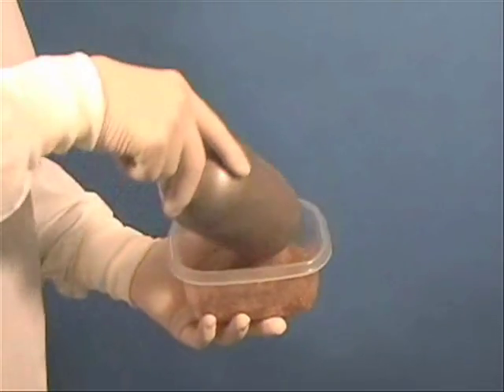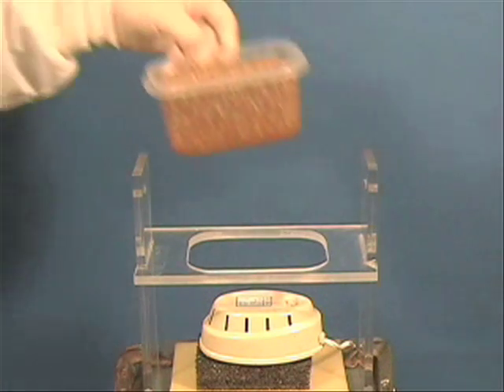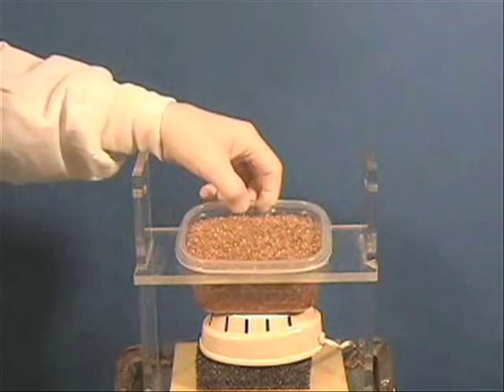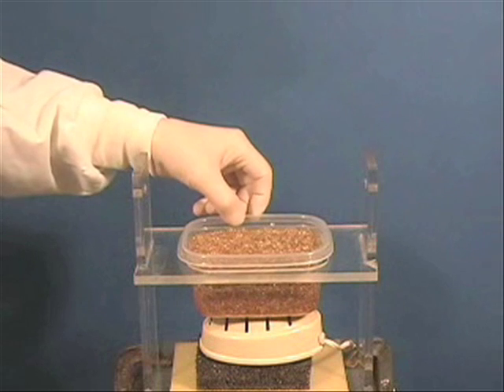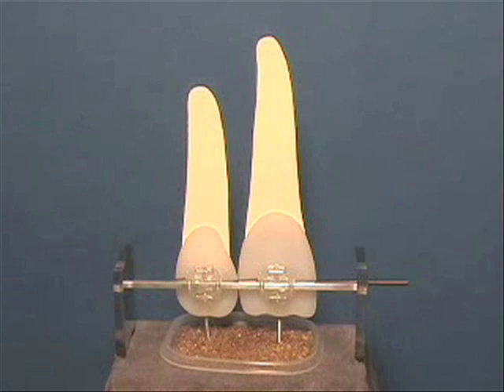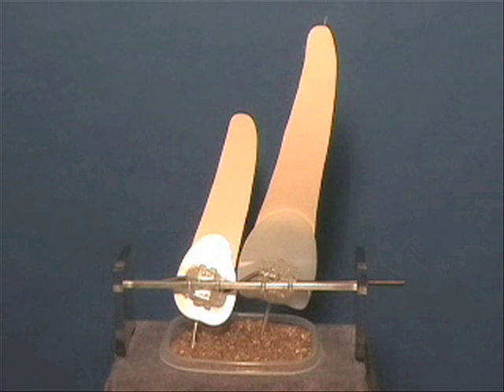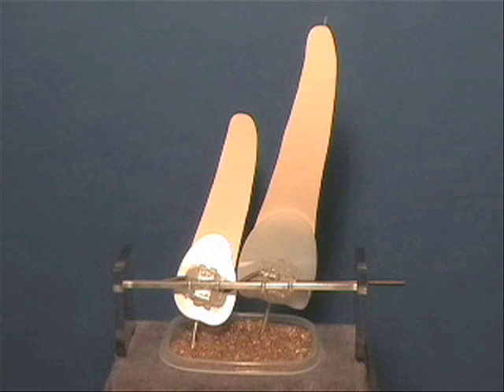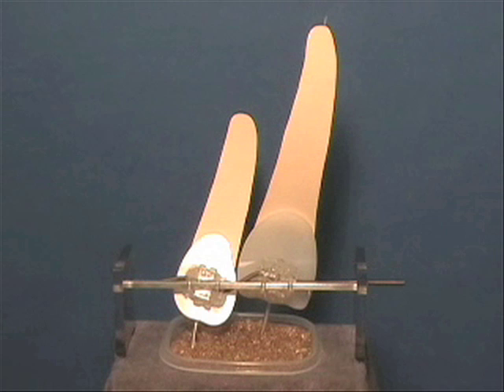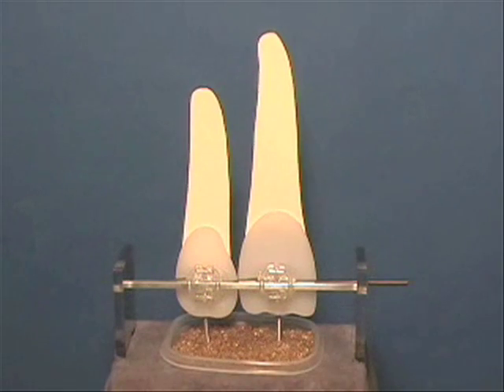An ordinary plastic dish is filled with plastic pellets. This will then be placed on top of a common vibrator as used when pouring impressions. Both of these are fitted into a special fixture which holds both the rectangular wire and the deep tunnel wire. As we activate the vibrator, the incisal rods are able to move through the plastic pellets to simulate the uprighting and torquing that will occur in the mouth.